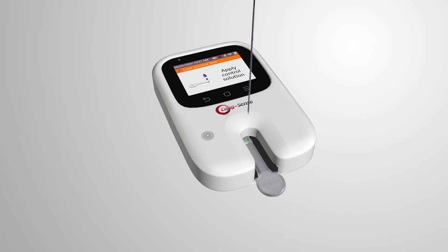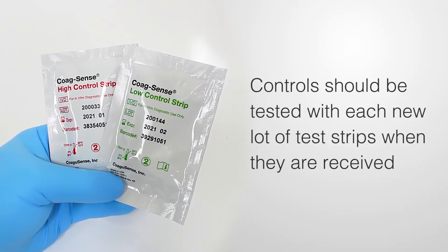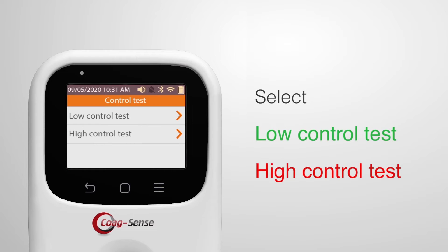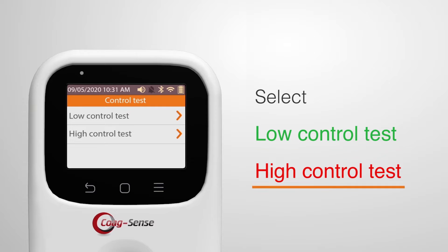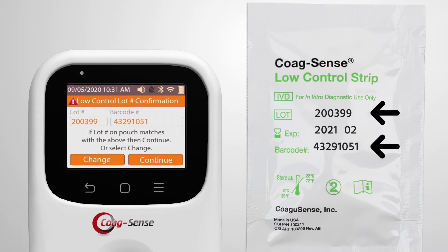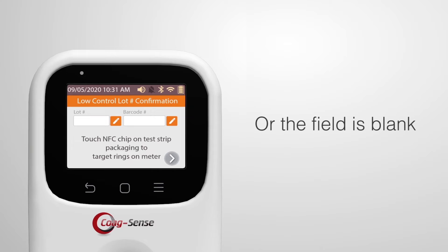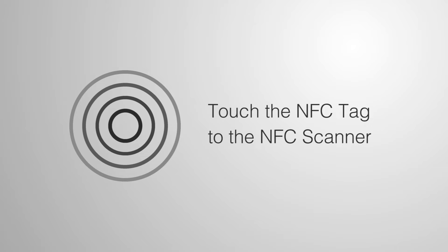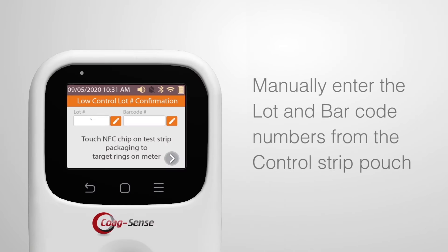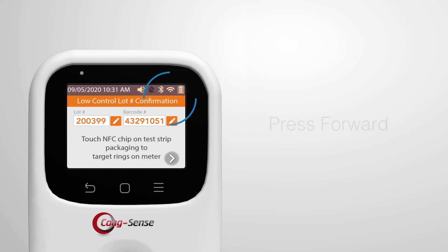This video provides a brief overview of how to perform a control test. Controls should be tested with each new lot of test strips when they are received. Press the control icon on the display and select either low control test or high control test. Confirm that the control strip lot number displayed matches the lot number on the test strip pouch, then press continue. If the number does not match or the field is blank, touch the NFC tag to the NFC scanner on the meter. If the NFC tag is not available, manually enter the lot and barcode numbers from the control strip pouch.